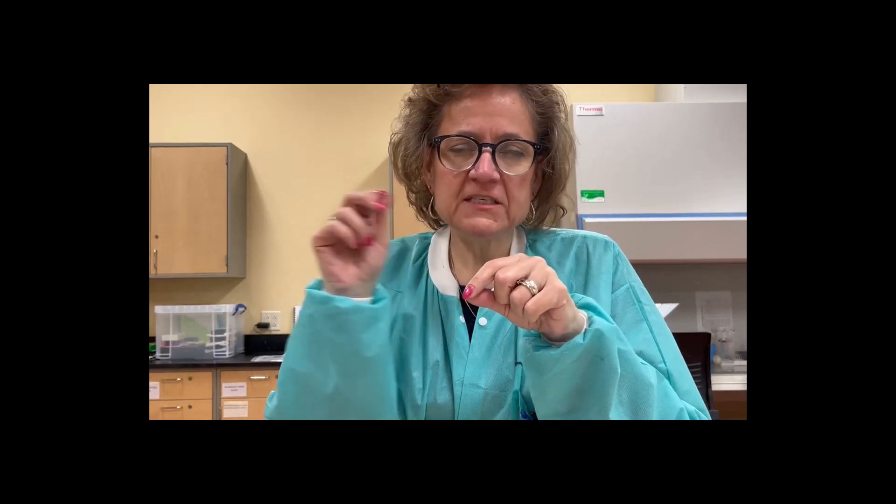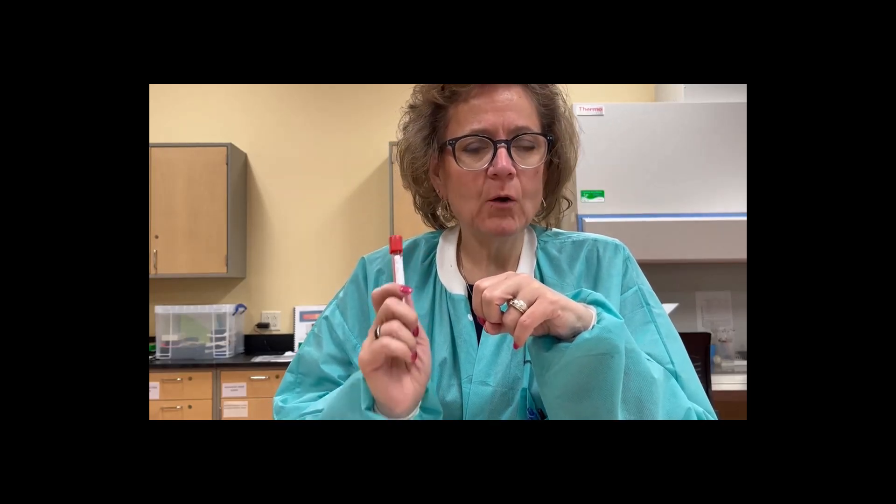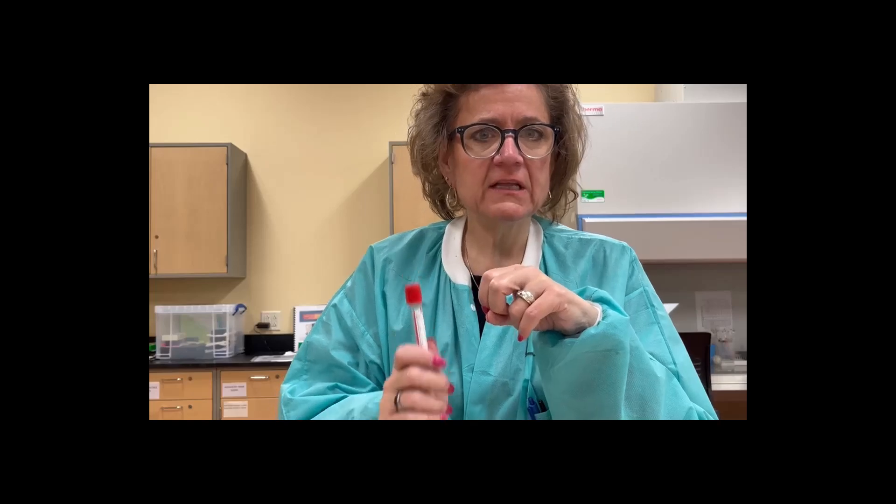I want to give you some hints for labeling patient specimens. First and foremost, always label with that patient still there. At the very end of every draw, you need to verify that patient's name a second time. Have them spell their name and give you the birth date one more time before they get up and leave or before you leave the room. You never take blood away from the patient and label it away from bedside, because we never want to take a risk of it being the wrong patient.